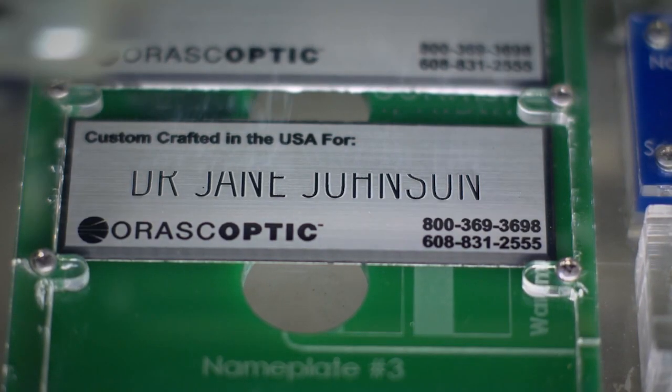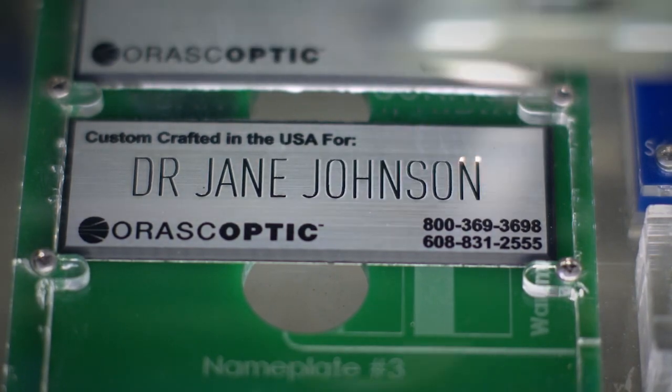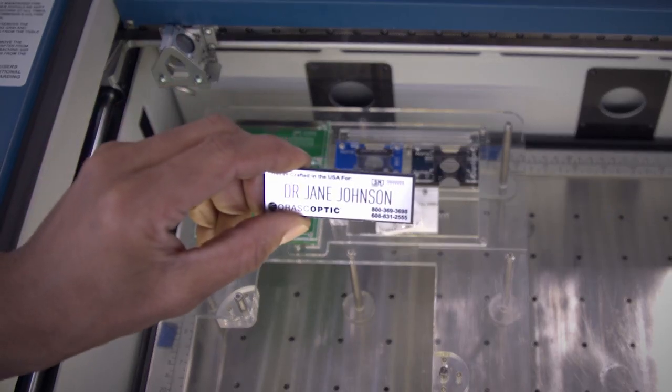To the laser engraving of your name on your one-of-a-kind, handmade, expertly tuned, and calibrated loupes.